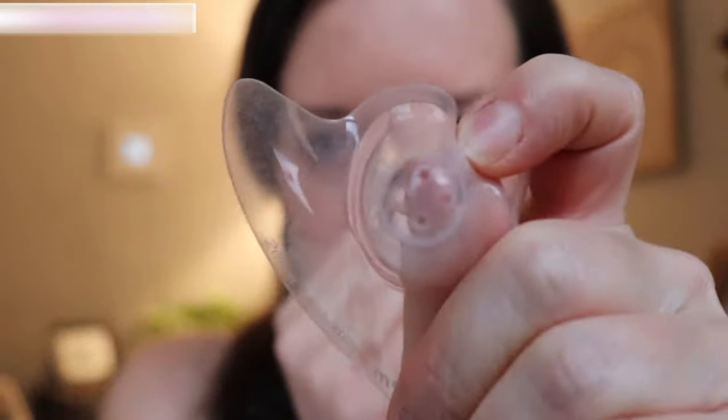This extends the nipple a little bit to help an infant who's having trouble latching latch onto the breast. The shield has little holes in the end where colostrum or milk will be transferred to baby. Some shields have a little cutout area here which promotes a little bit more skin-to-skin with latching, and baby's nose should be right up against the parent's skin instead of being pressed up against plastic or silicone. So if you're in the market for a nipple shield, look for this cutout.